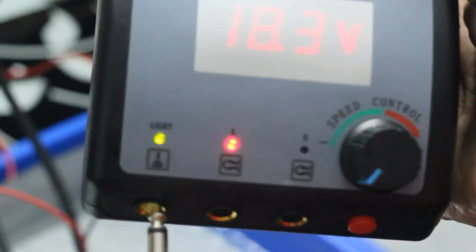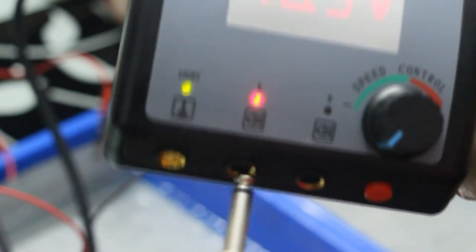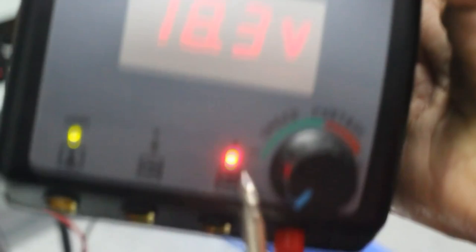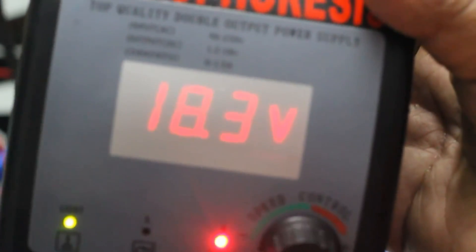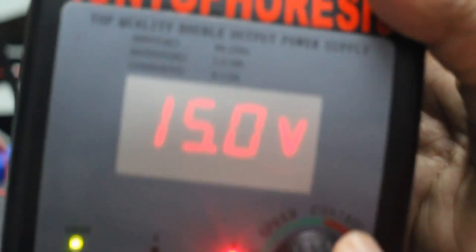You see this red button here. The first plug-in is not operating as that was designed for the foot switch. The S and L outlets, once you press this red button, these two outlets are the same. You can plug in at any spot. Once you increase the intensity, whether it's S or L, it will indicate. In that indication itself, you insert the plug for the alligator clips.